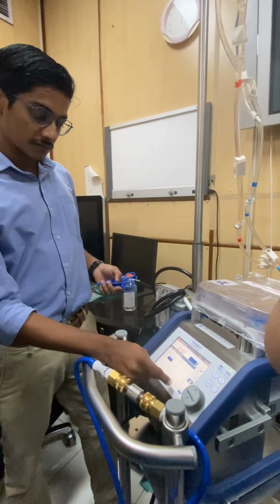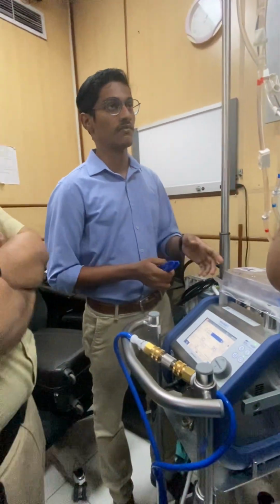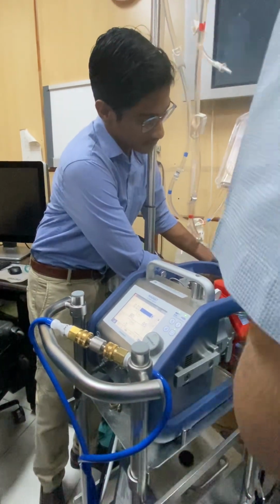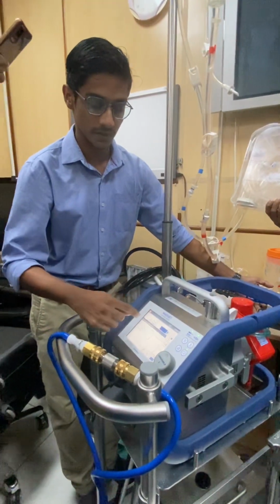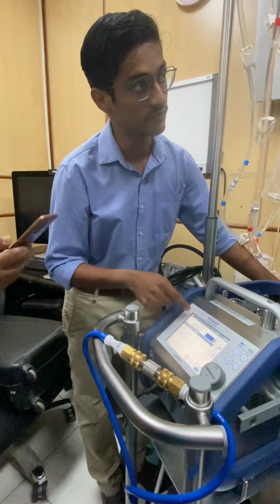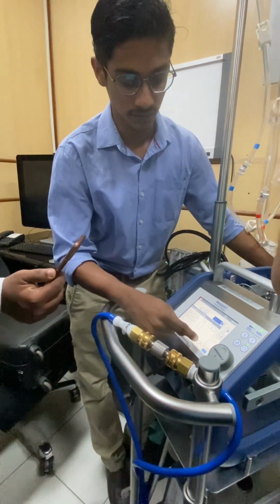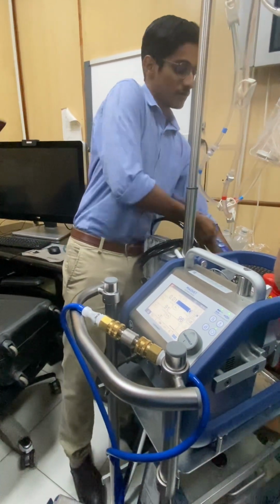Now you can see it is showing minus 0.02. That is because the flow sensor is not calibrated. To calibrate it, this is the sensor clamp, before and after the sensor. Go here, go to the venous. V dot is flow. Here you can see 0. Click on 0. It will give you an instruction: is the tube clamped pre and post? Yes. Done. It's 0. Once it is 0, take one clamp and clamp the venous line.